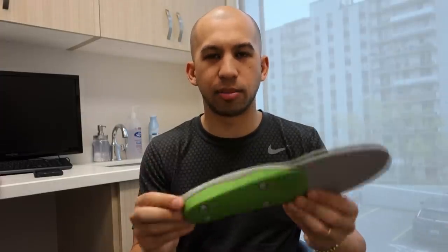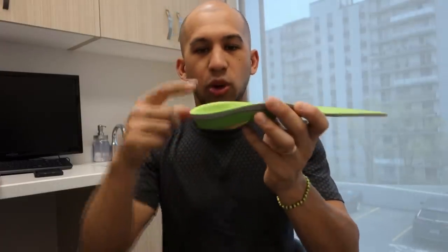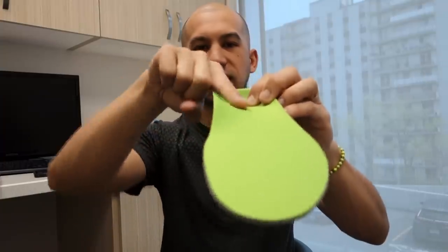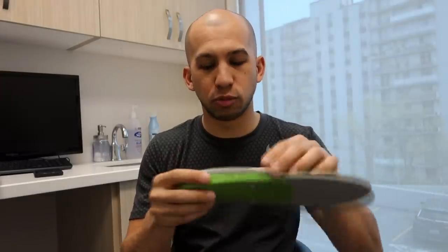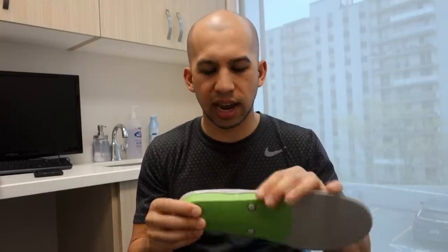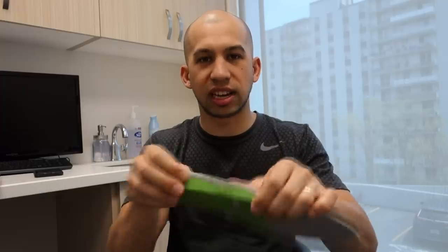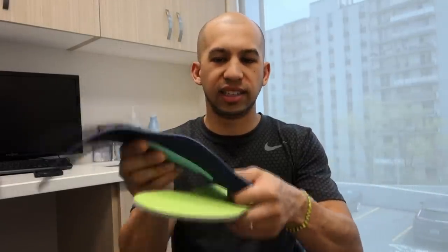Comparing to the last one, this one is much firmer. The key difference is what we have on the bottom of this insole — there's a hard plastic shell that goes up into the arch from the side view. We have a much deeper heel cup and a nice high arch shape. This has a much firmer arch support than the previous one, which will definitely give you more support and hold. What I find about insoles is that sometimes the firmer they are the more problems we can have, because the foot still needs to move — it can't be too rigid. But this one is still flexible; I can still bend it quite easily.